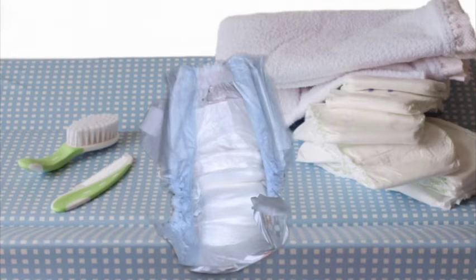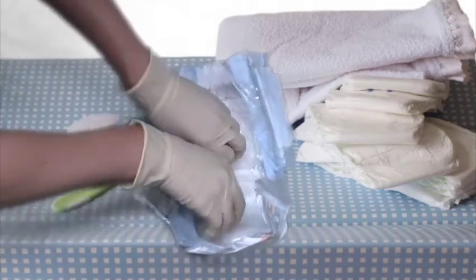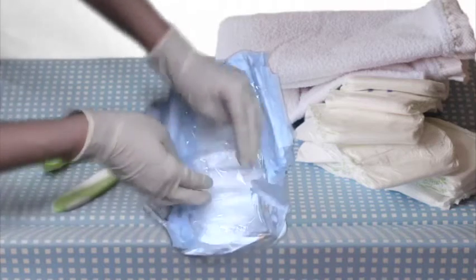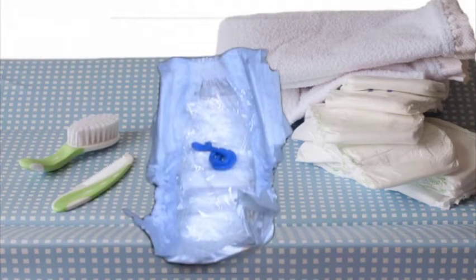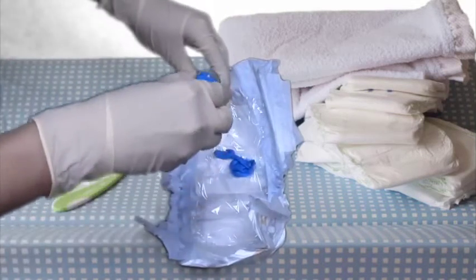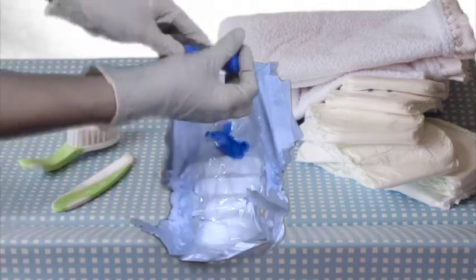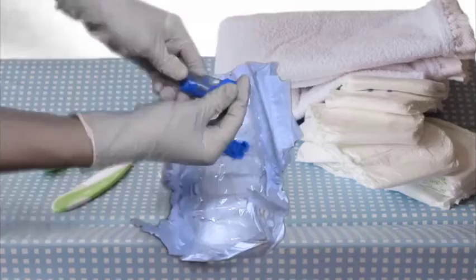For a small child, or if you cannot collect the sample any other way, you may consider collecting from a diaper. If the stool is firm, use plastic wrap to line the diaper — this will keep the stool sample from being absorbed into the diaper. Remember, if stool from a diaper has been peed on, the sample cannot be used. As a last resort, you may use the spoon to scrape poop directly from the dirty diaper. You will need at least a cherry tomato sized amount of stool.